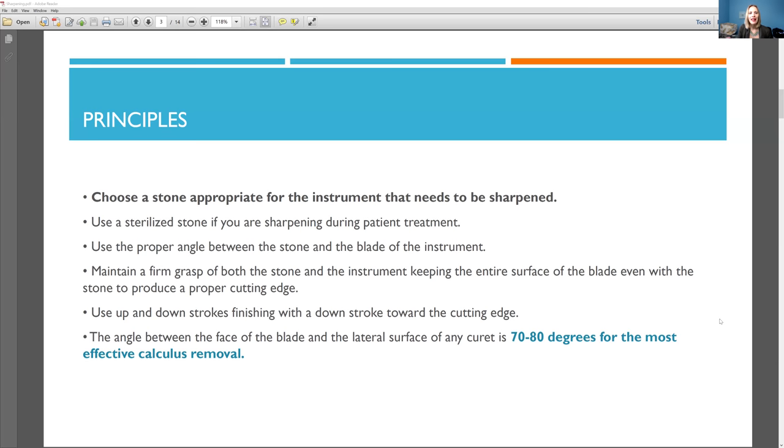It's still a good idea to put the instruments through again, to make sure it's as clean as possible, because you don't want a tiny metal shaving underneath the gum line, right? As you're cleaning, that could happen. How could it not? Because that's how you are sharpening, little pieces of those instruments are coming off. So I wanted to mention that too.